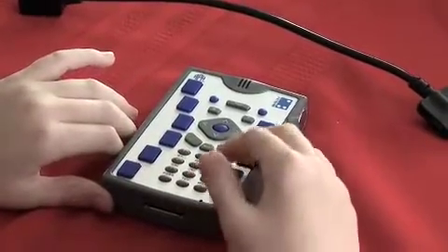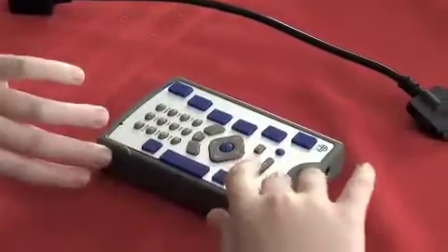If you turn it 90 degrees to the right, you can feel your Braille keypad.